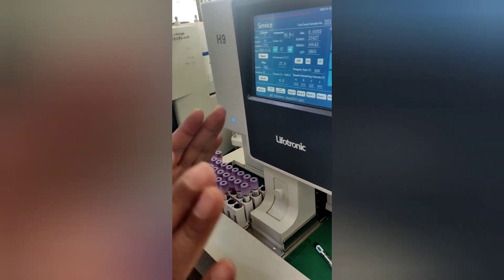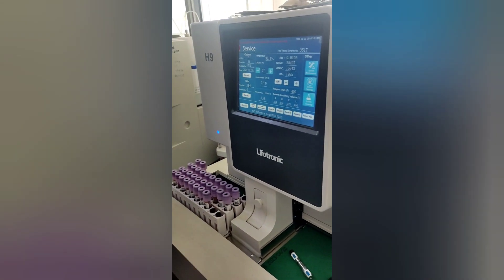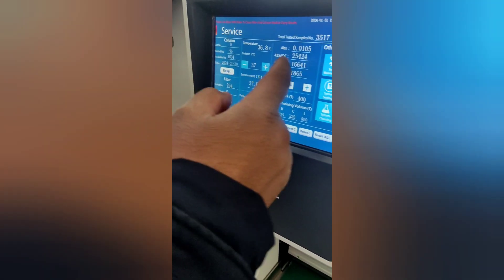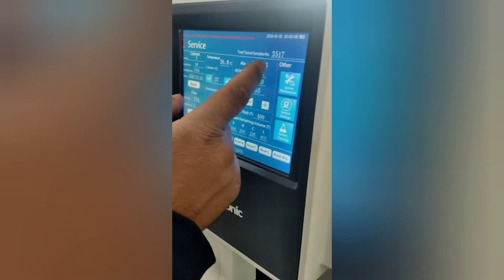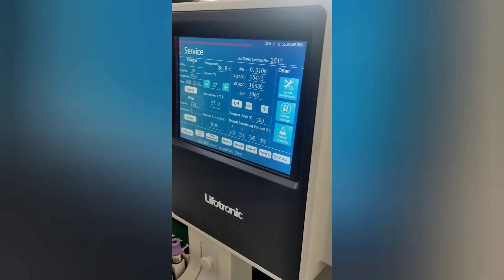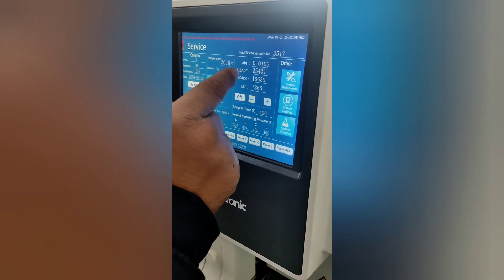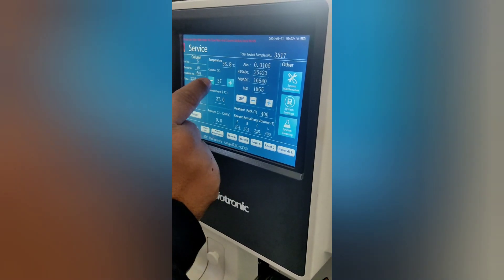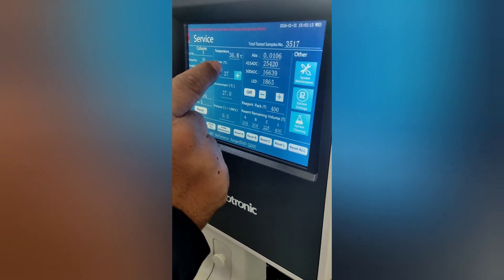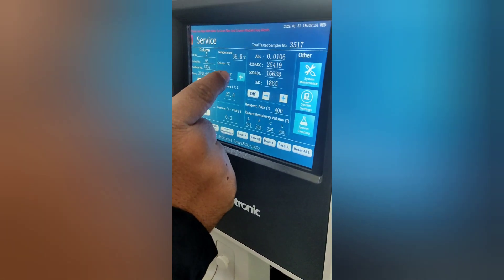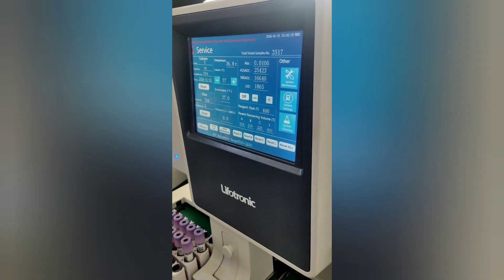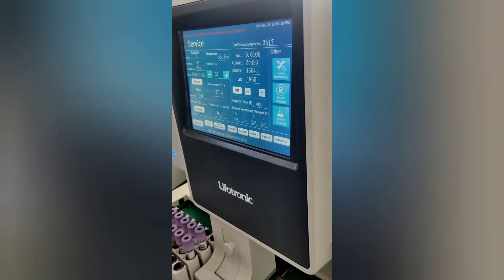Since this H9 module measures values in dual wavelength — 415 and 500 nanometers — we should also check the ADC ranges. The 415 nanometer ADC should be in the range of 24,000 to 26,000, and the 500 nanometer ADC should be in the range of 16,000 to 18,000.